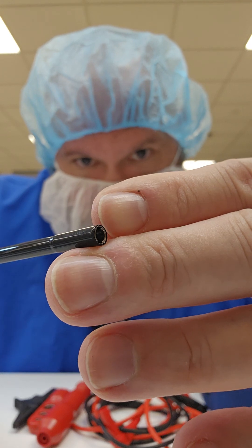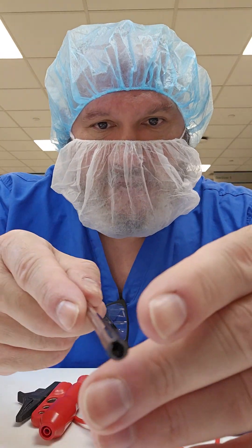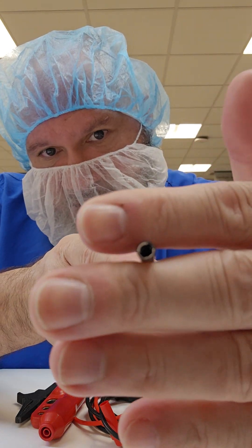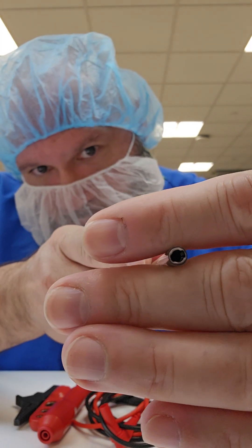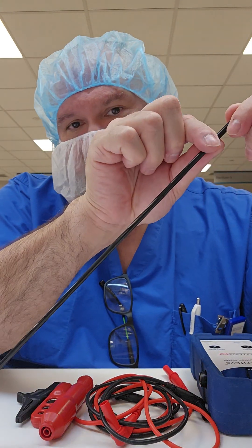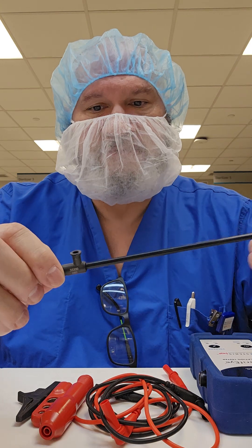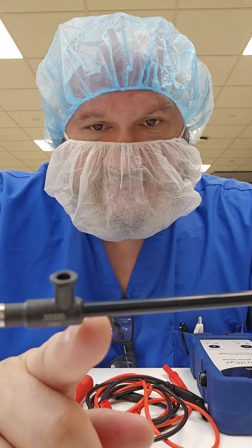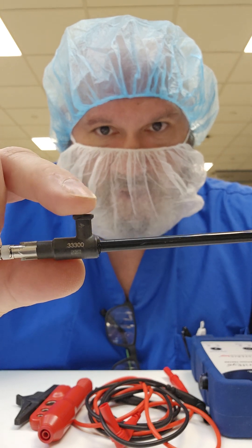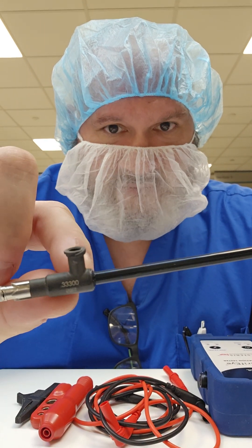It also shouldn't be overlapping the insert. You're going to inspect the internal channels to make sure that the locking mechanism in there is not collapsed or cracked — it should be intact. You're going to run your fingers down the insulation to feel for any imperfections. You're going to check the seal from the insulation to the port — there should be no chipping, cracking, or peeling.